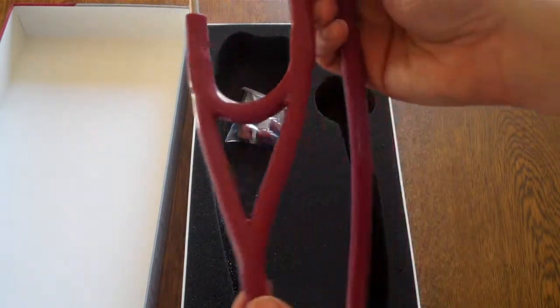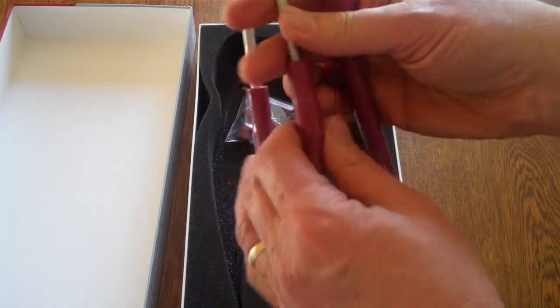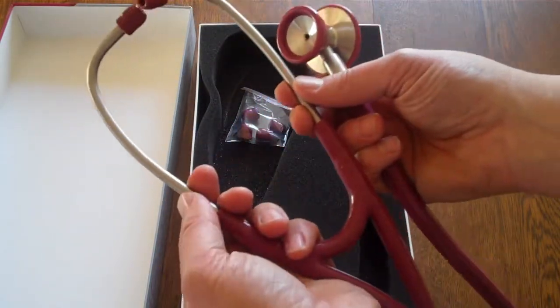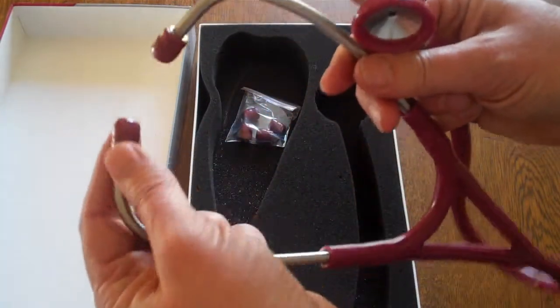Has very good quality, thick cardiology tubing, a sprung headset made in surgical steel, soft ear tips.